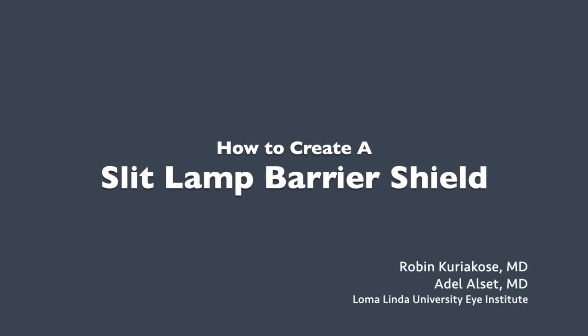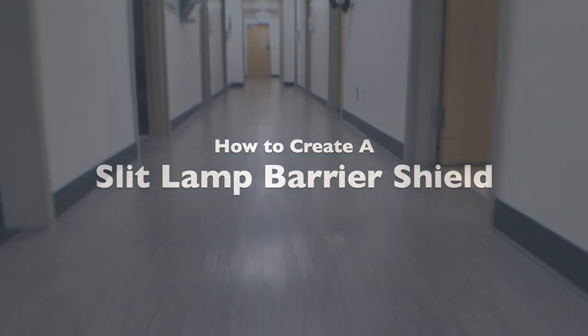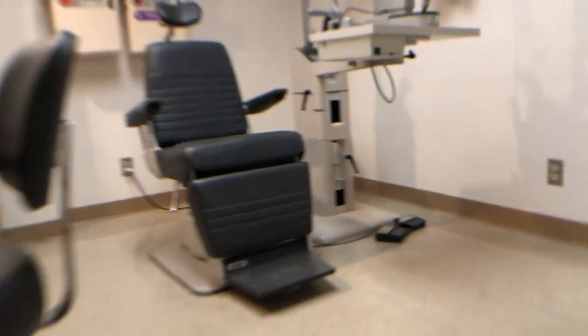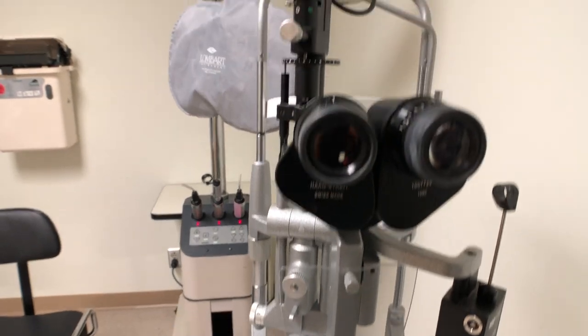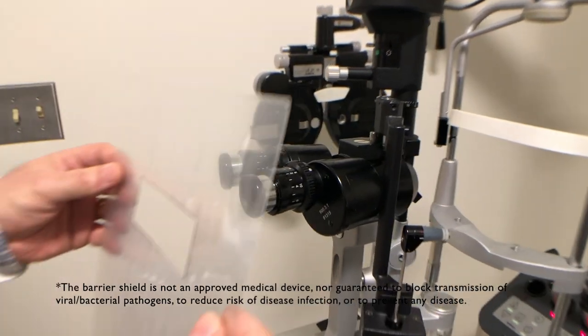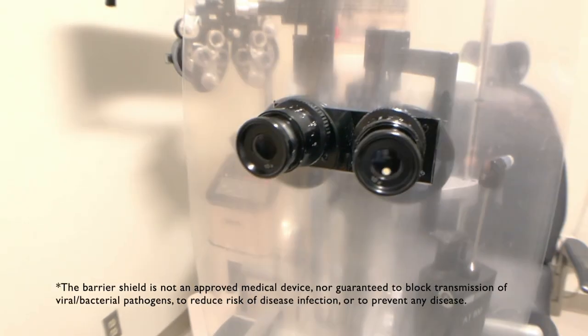Despite the COVID-19 pandemic, vision-threatening pathologies continue to exist. As ophthalmologists, our examination is a huge component in assessing these pathologies, and we are oftentimes within inches of our patient. In light of this, we wanted to share a quick video on how to create a slit lamp barrier shield to help mitigate transmission.